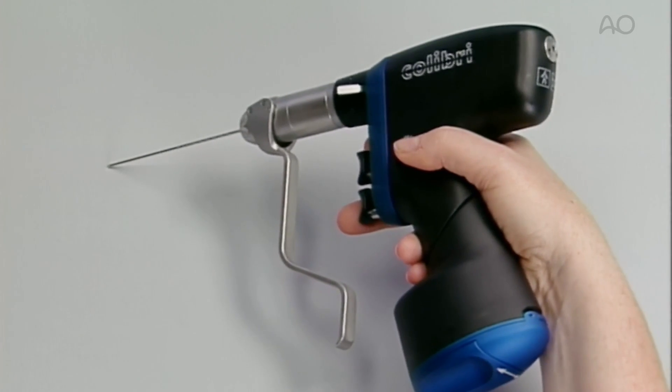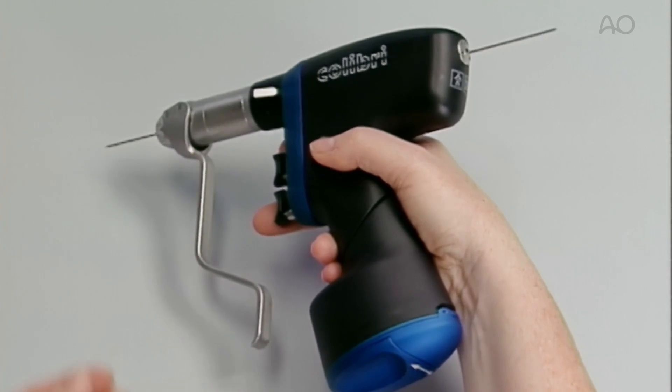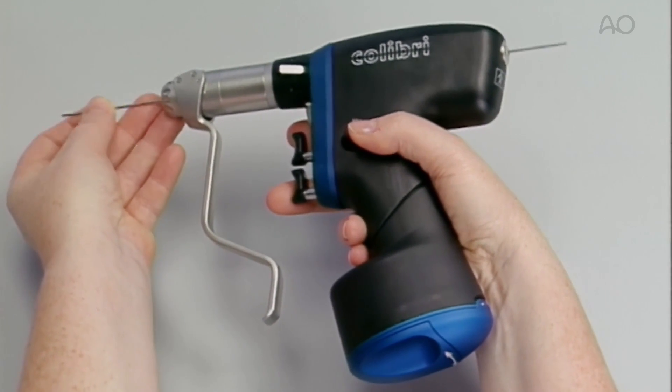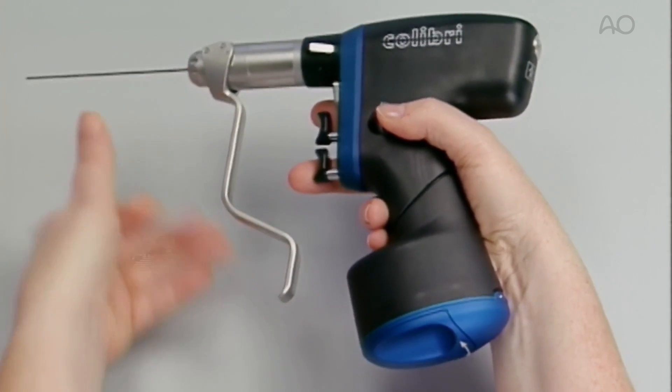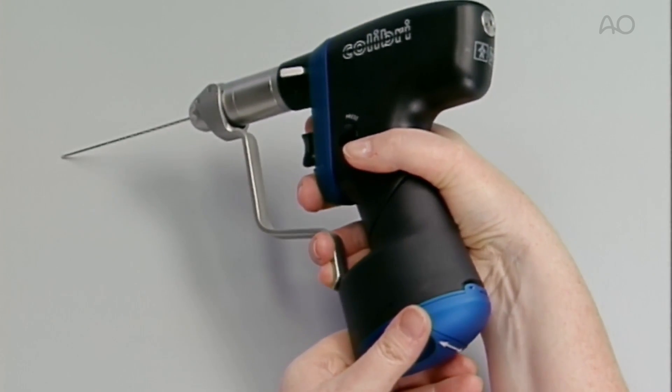An internal mechanism prevents the wire from falling out, but does not hold it securely. Pulling on the lever clamps the wire, allowing it to be inserted.